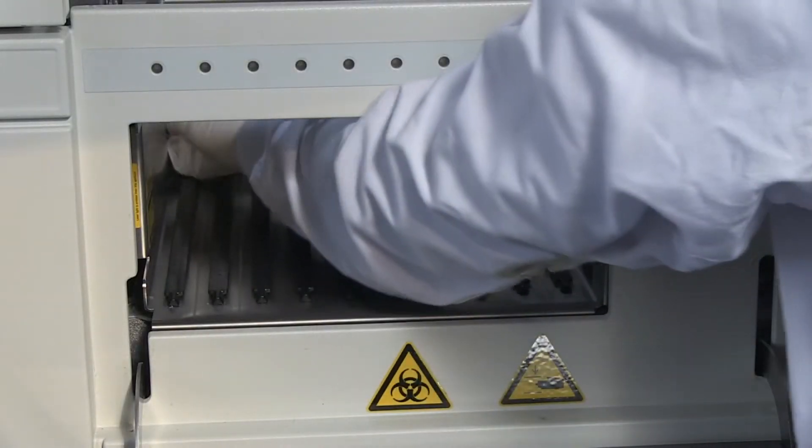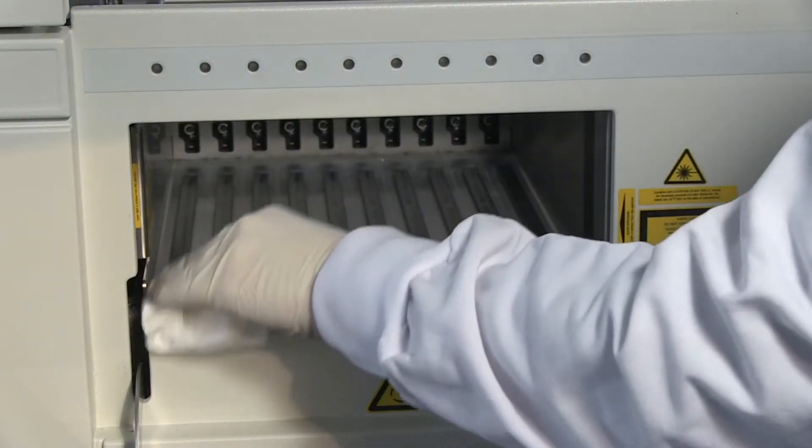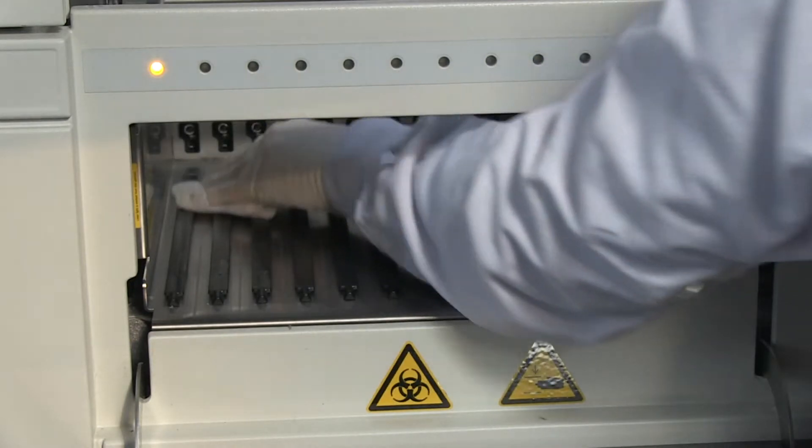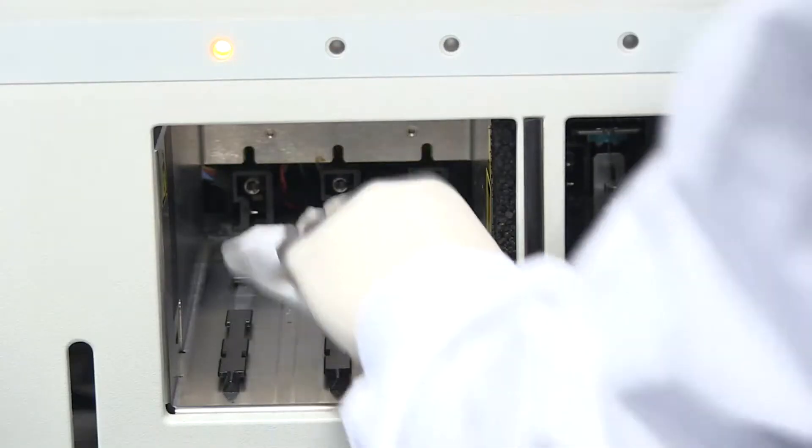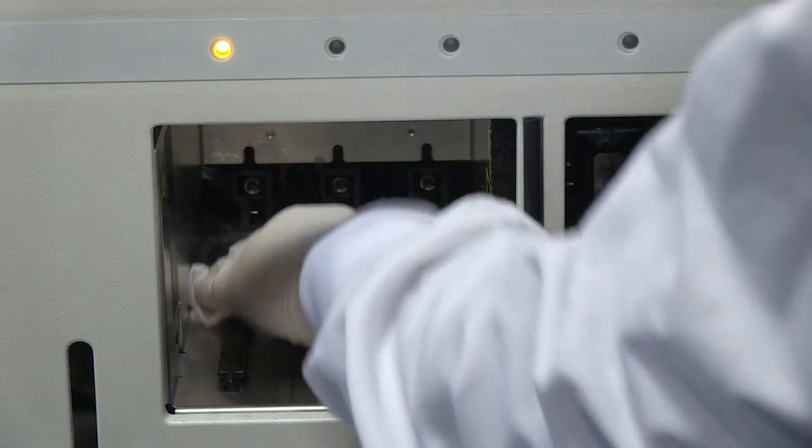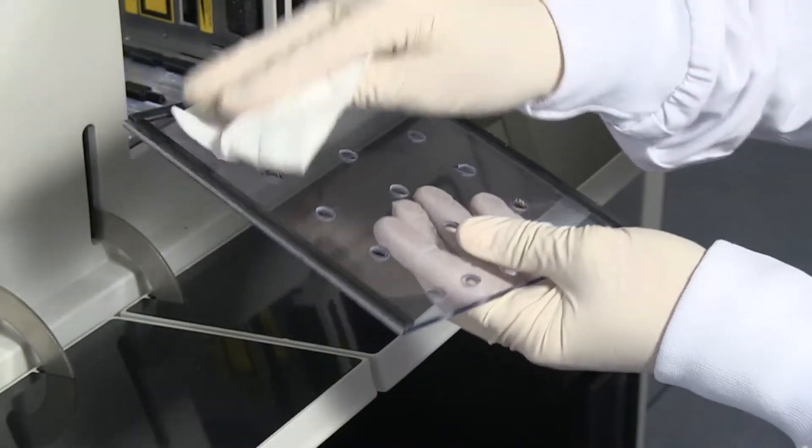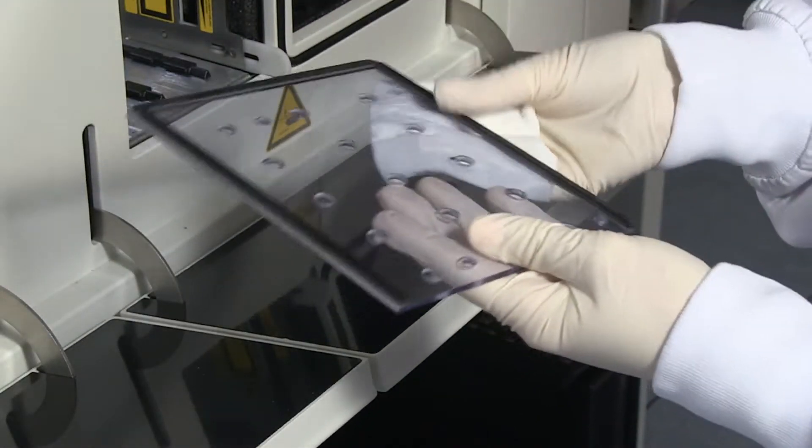Clean up any splatters and spills in the sample bay, in the reagent bay, and on the acrylic glass cover by wiping with water or water-based detergent.